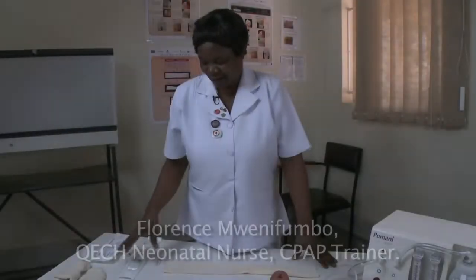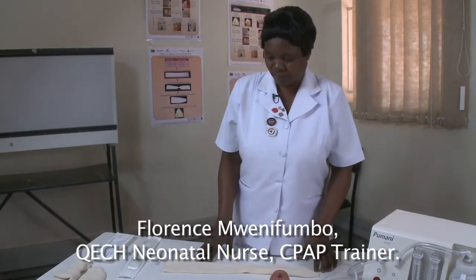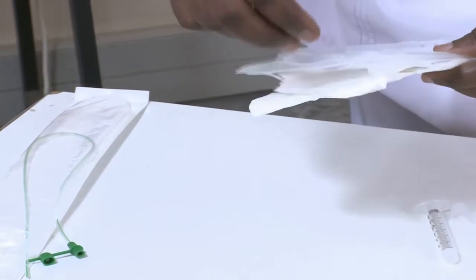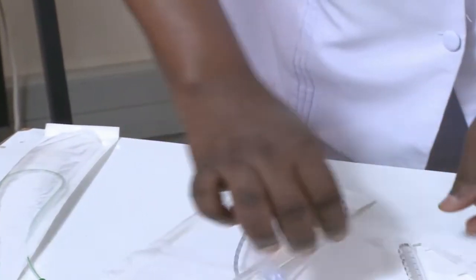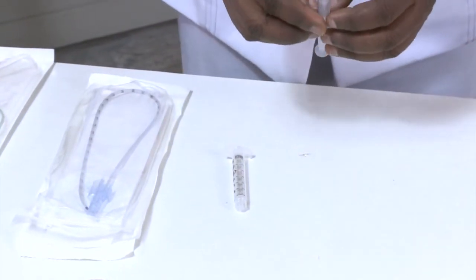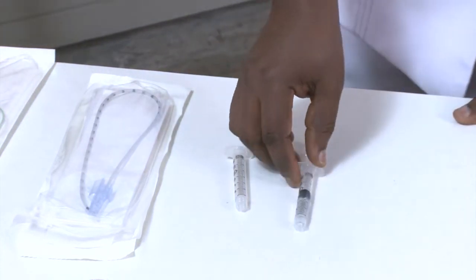On my table here, I have things that I need to put a baby on CPAP. Here I have the OGT — this is my tube that I'm going to put in the mouth for feeding. I have a tube here for suctioning, and I have my feeding syringe that we are going to use for feeding the baby. I also have saline on my syringe to moisten the nares of the baby.